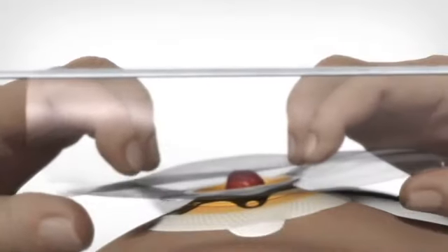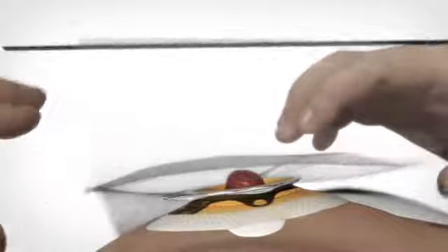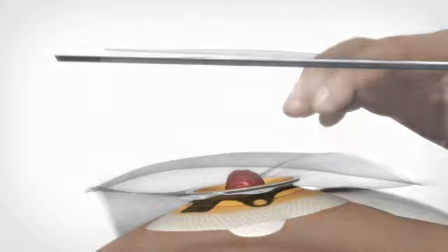The sleeve may be turned to its optimal position. Then close the lock ring. When you hear a click, the sleeve is securely locked to the base plate.